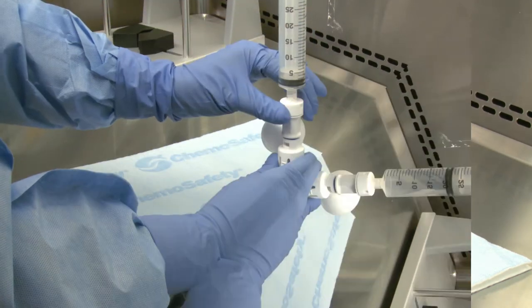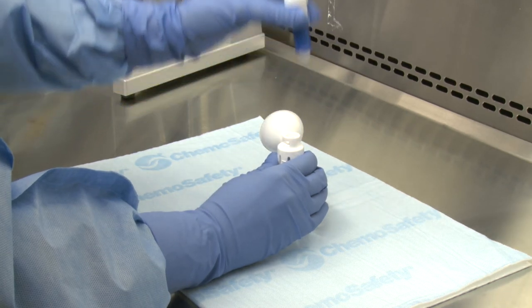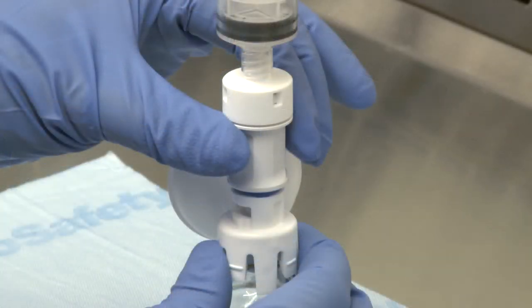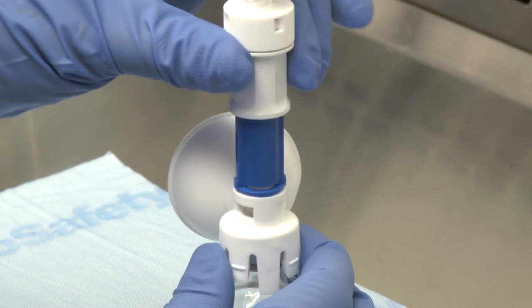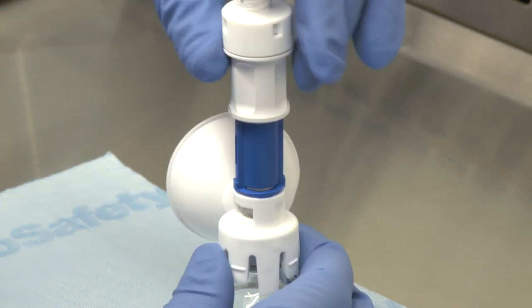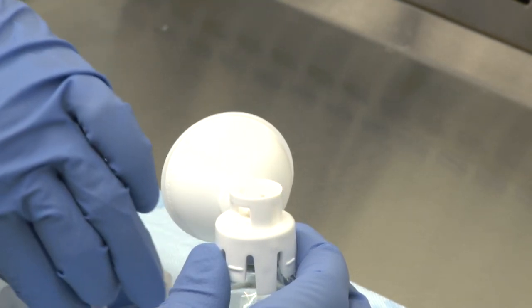Disconnecting components is similar: pull, turn, and pull to disengage. First, hold the white portion of the mating components and the white finger grips of the injector. Next, pull the device back from the connection interface until it stops. Turn left or counter-clockwise. Then pull the injector to remove it from the mating component.